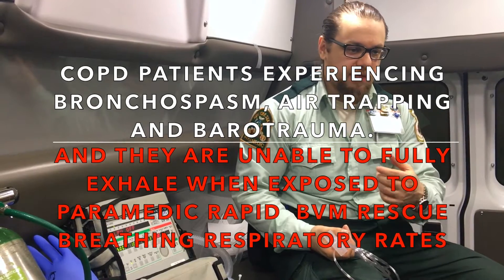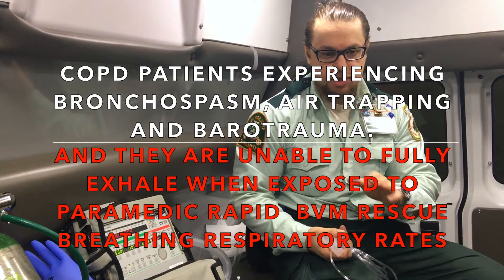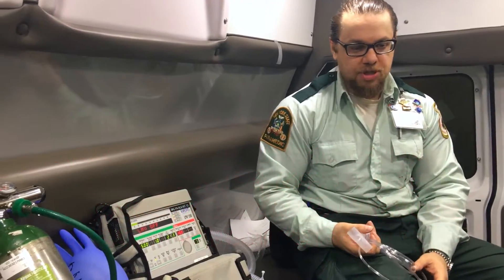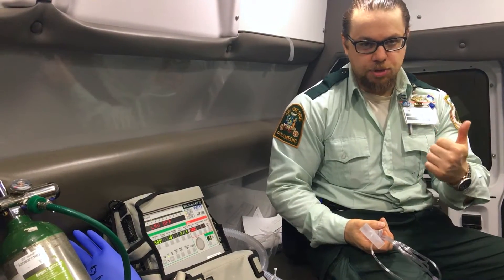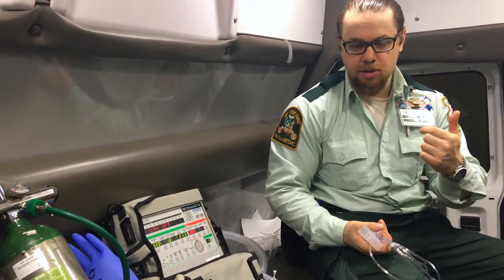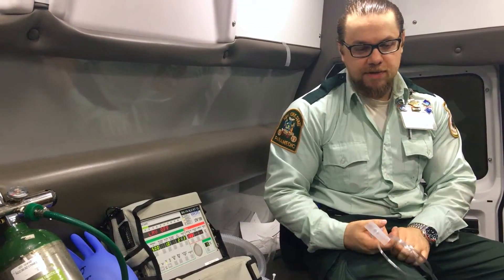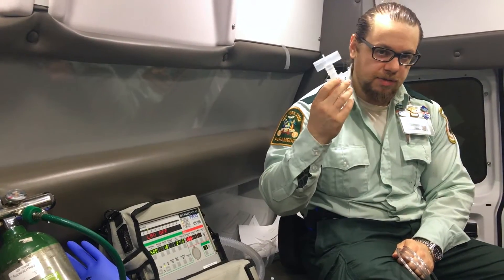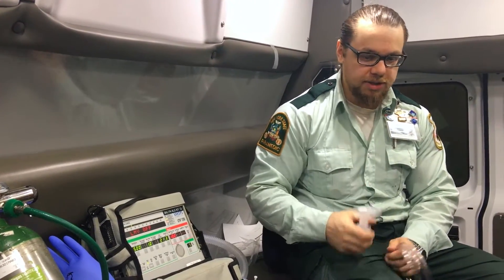If there's no problem with the ventilator and you disconnect, then you check it out and you hear wheezing — the patient needs nebulization. He needs albuterol, he needs ipratropium, and he wants to be on the ventilator. You have to deliver this through the nebulizer. So how would you go about setting this up?